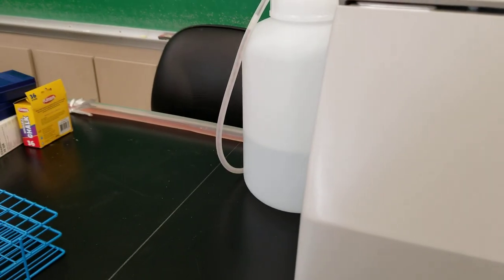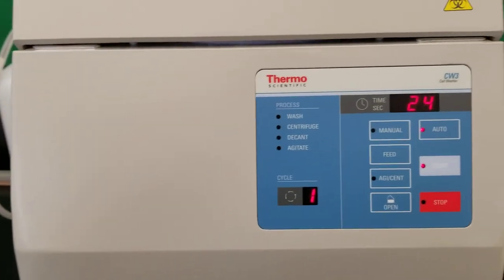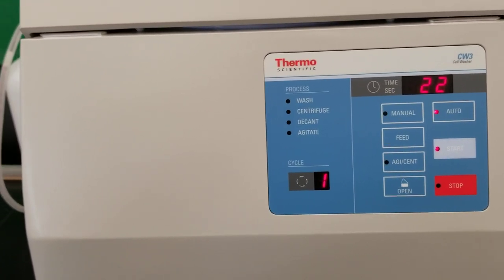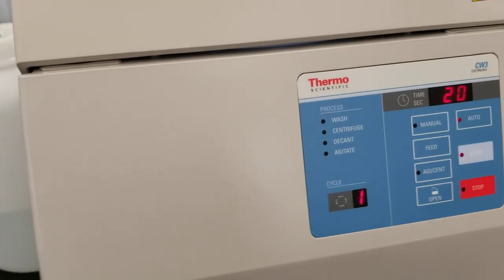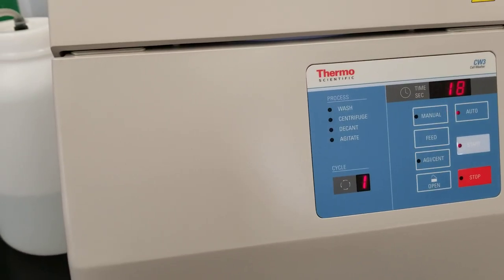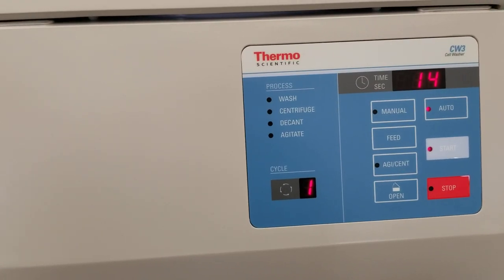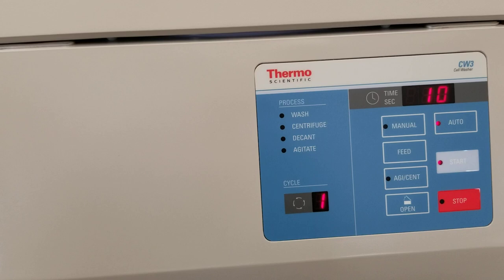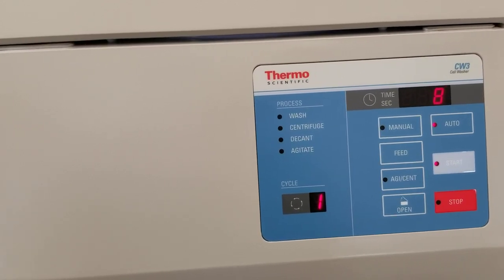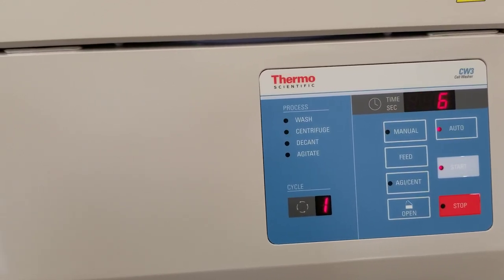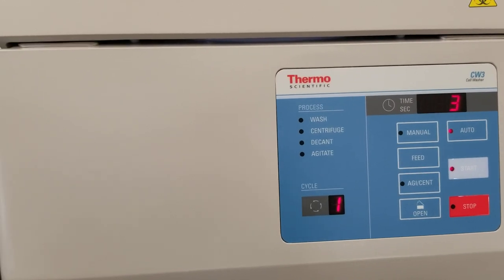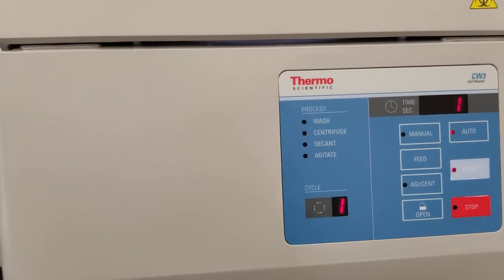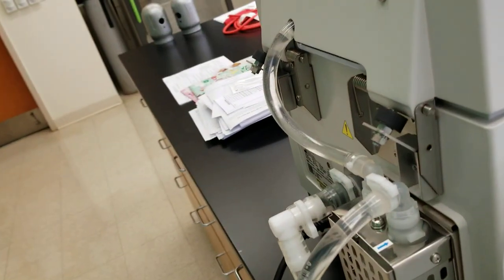You'll see that there's like a wave in the tubing of fluid. So decanting is about to happen. So you'll see the tubing.